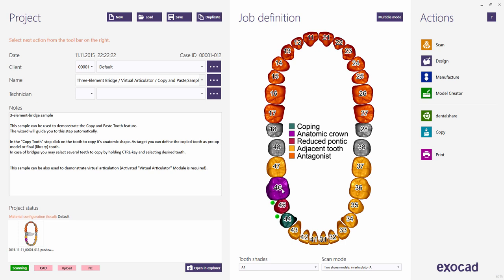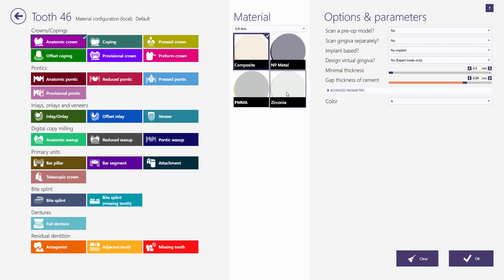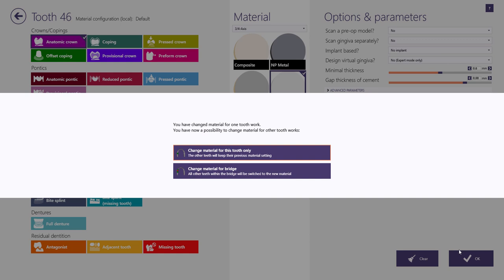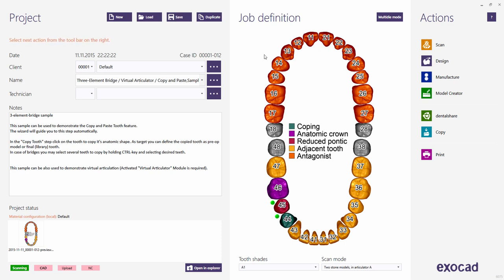Before we proceed to the design, I will slightly change this job's material configuration. I want to design this job with a 3-4 axis material. To do that, it is enough to select one of the teeth. Select 3-4 axis in the material drop-down list and reselect the desired material for the 3-4 axis material configuration. Note that the last selected material configuration will be used for the next project. Click OK to apply the changes, and choose Change Material for Bridge to apply this 3-4 axis material configuration to the whole bridge. Otherwise, you must change the configuration for each tooth. Before you can proceed to the design, you must click the Save button to enable all Actions buttons, as you did crucial changes in the project configuration.